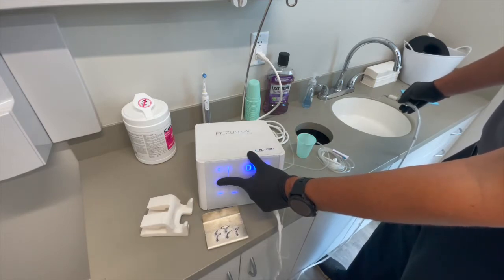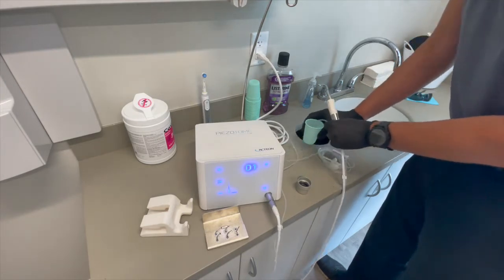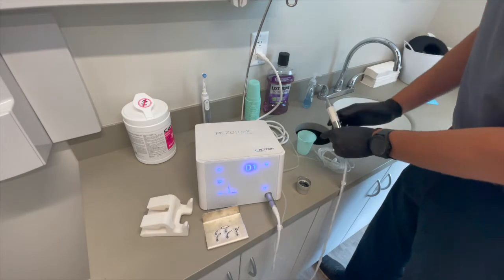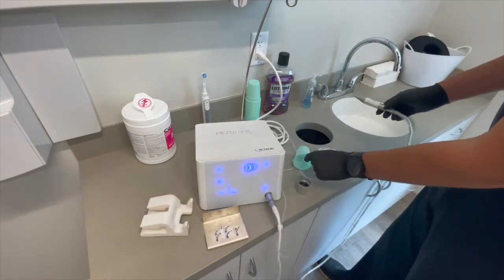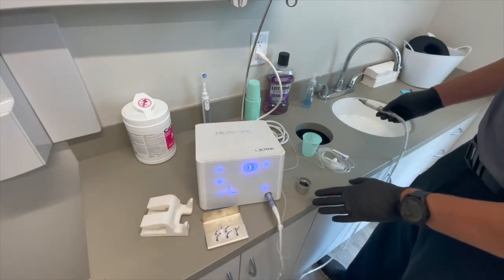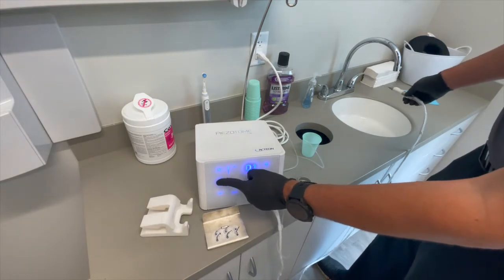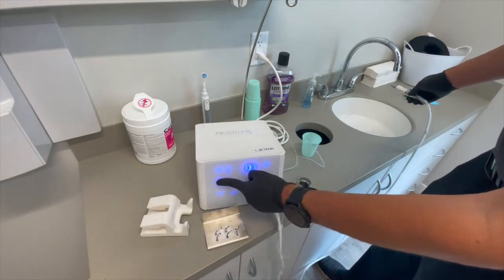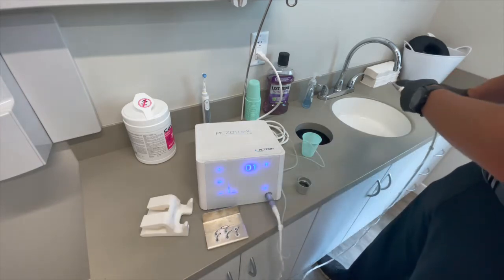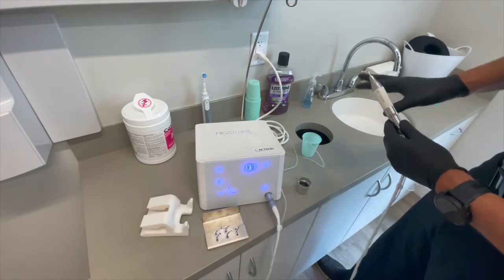What we're doing now is flushing out the irrigation line as well as the handpiece with fresh tap water. If you're using the autoclavable version, normally you'll use the entire cup, but make sure to save the tubing. If you're using the disposable version, the tubing goes in the trash when you're done. Let the pump flow through even after the water is gone — once no more water comes out, you've cleared the irrigation line and handpiece.